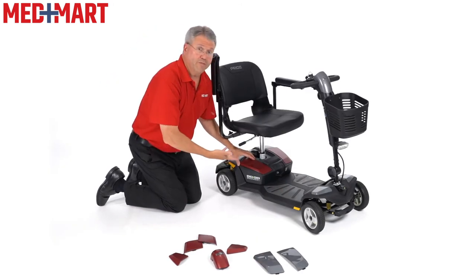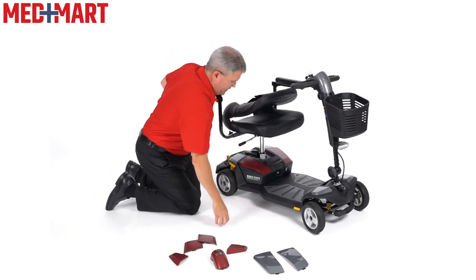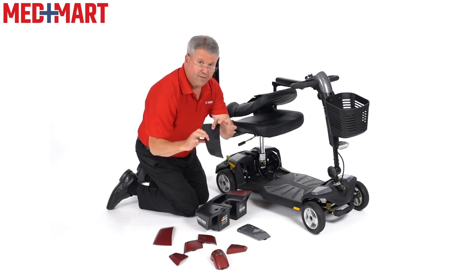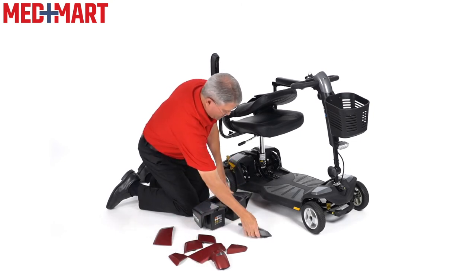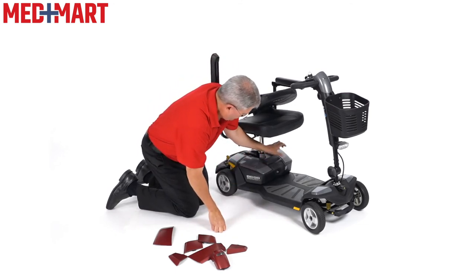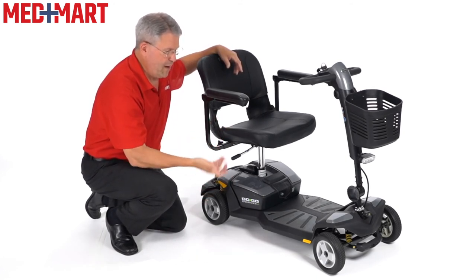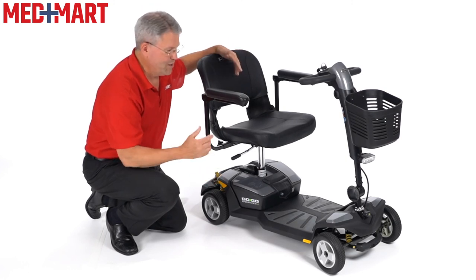When it comes to the battery pieces, it gets a little more confusing because you look at it and go, well, how am I getting my fingers underneath there? The key — and it's probably easier to do with the seat off — is to actually take the whole battery off. In the back, there are two little gaps right there to make it easy to pop these pieces off. Pop the new piece on; there's a little velcro tab. So there you go — that's what it looks like with the gray in place. Easy to change out once you know the hang of it. At first it even stumped me because I wasn't sure and didn't want to break those tabs. That's the way they do it to make sure you can pop those up and get them off easily. Now I can go back, maybe in a couple months I'm going to go back to red — winter, summer, fall, you never know. You want to change colors and it's super easy.